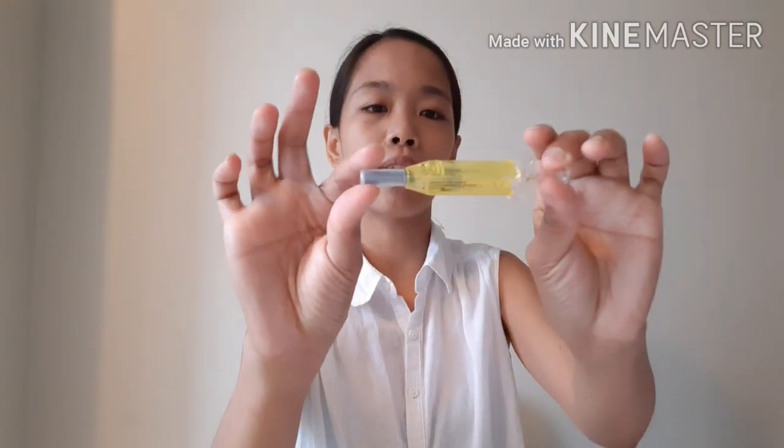I do this every two weeks. The syringe is already filled — for some medications you have to transfer or aspirate, but this one is ready to use. I normally sit when I do it because I have more fat available when sitting, but since I'm showing you I'll stand up a little.